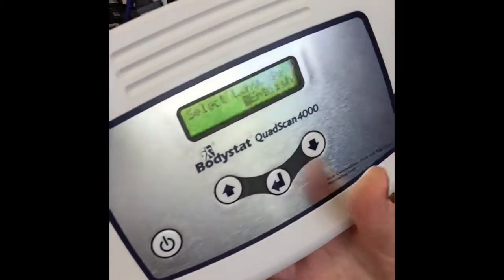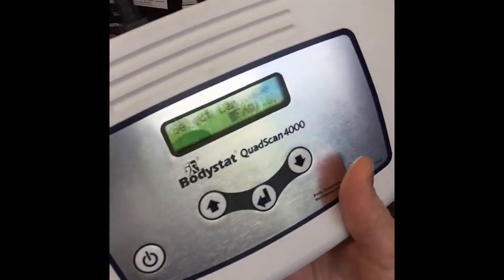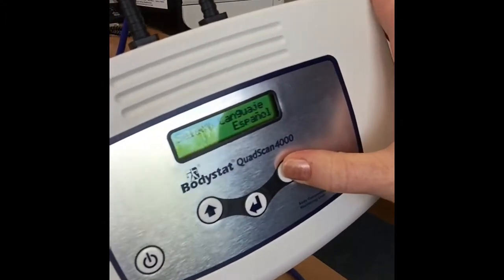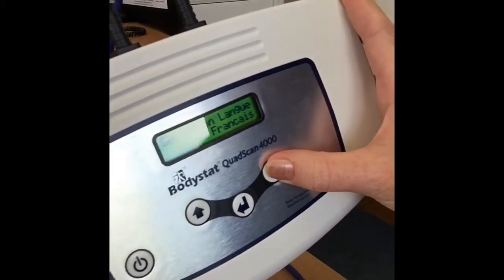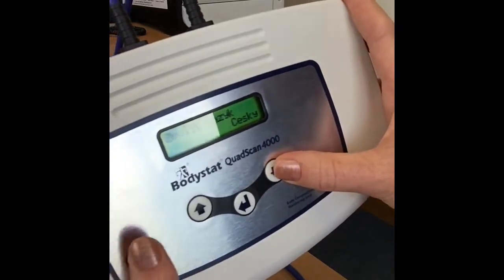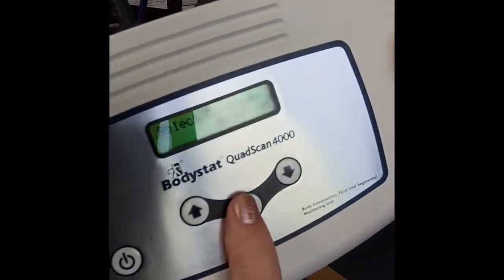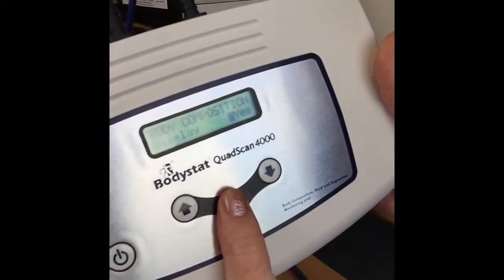You can lift your finger off the button and the first thing that comes up is your language selection. You're able to scroll up and down to change the language to various different European languages. We'll just keep it to English for now. Once you have chosen your language, just press enter.